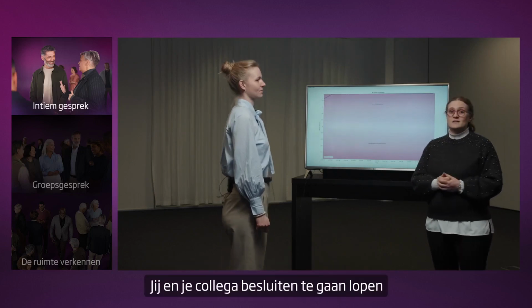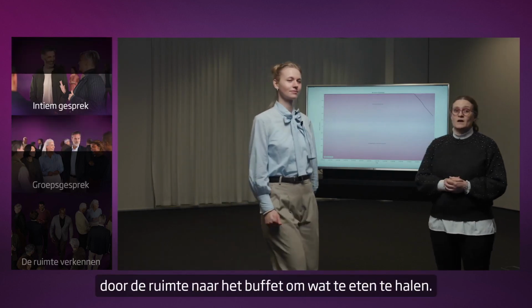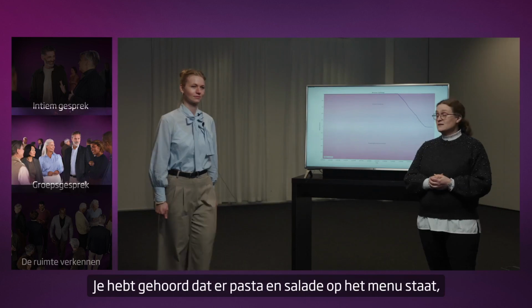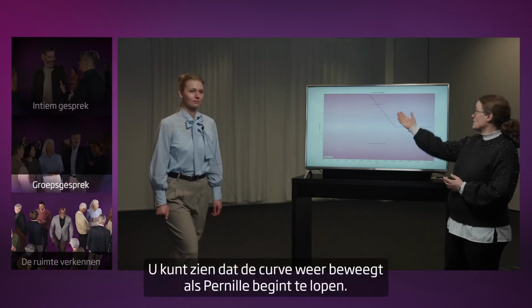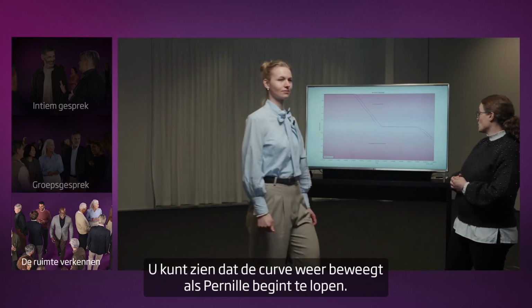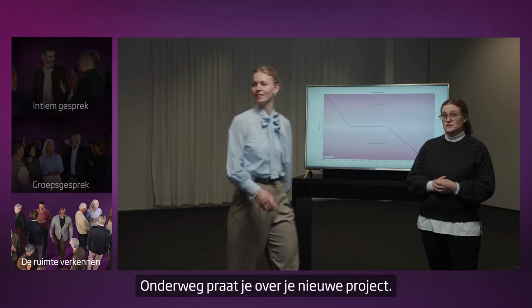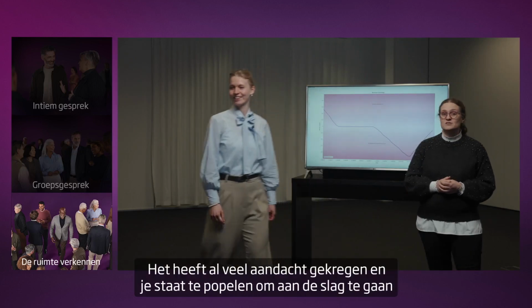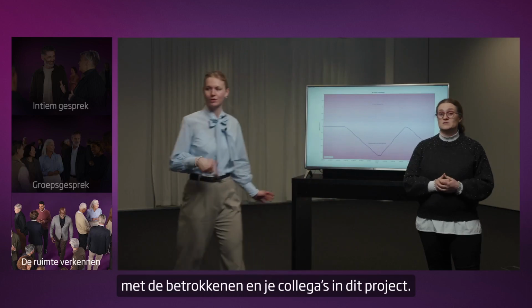You and your colleague decide to walk across the room to the buffet to get some food. You heard that there's pasta and salad on the menu, and you're looking forward to that. We can see now that the curve is moving again as Pernille starts walking. On the way, you chat about your new project. It's already gotten a lot of attention, and you're eager to start working with your stakeholders and your colleagues on this project.